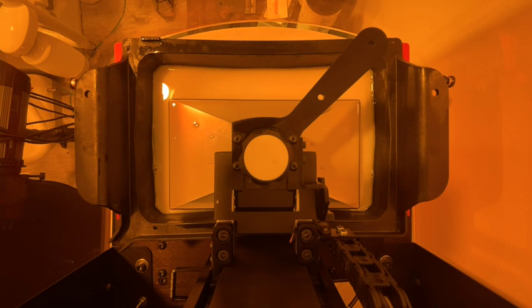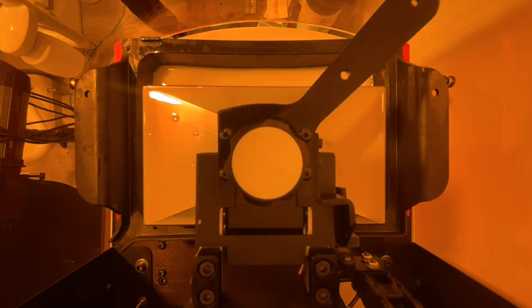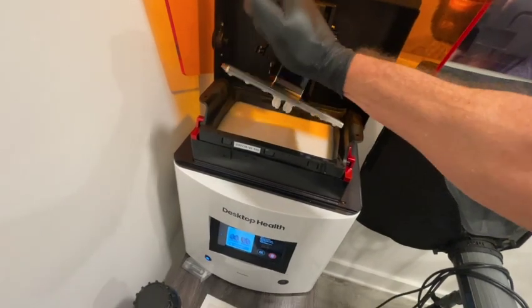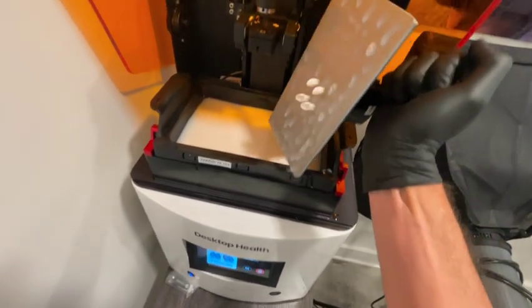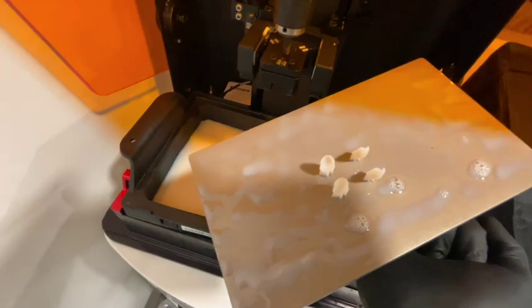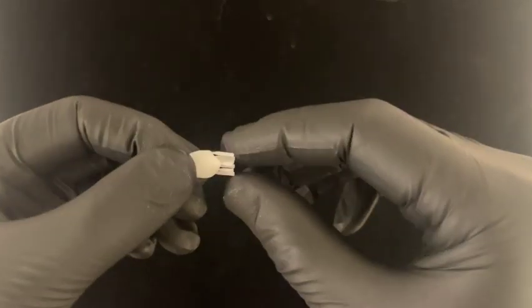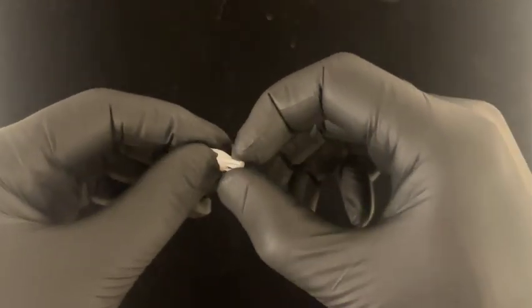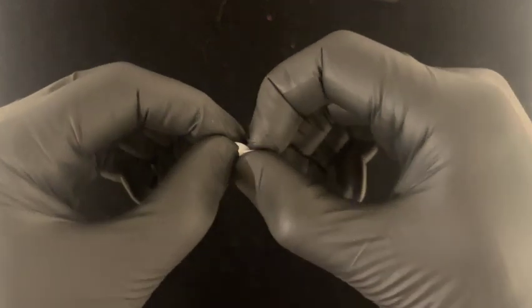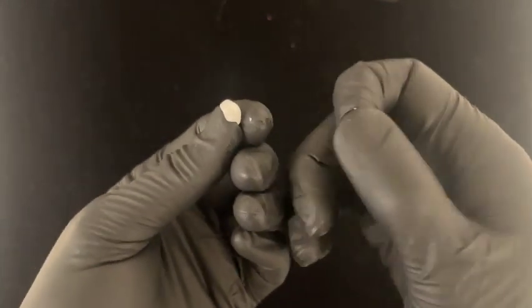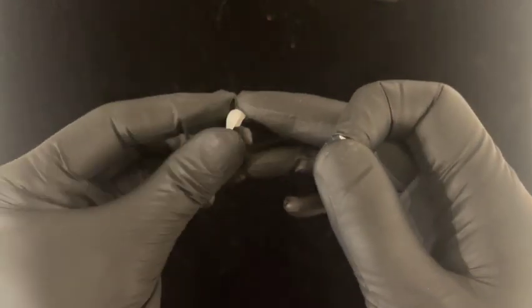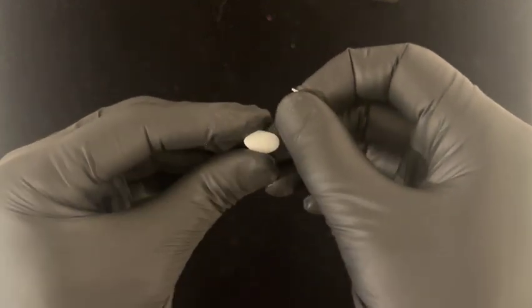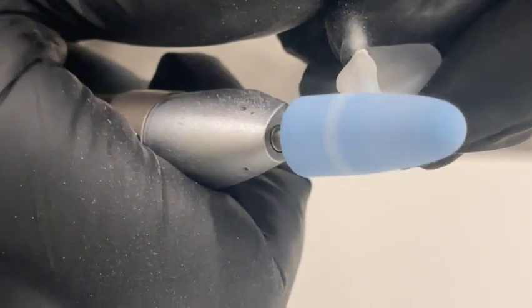So this is about an 18-minute print on the Einstein. Once it's done, we are going to put it in our alcohol bath, get everything nice and clean. And then we will just remove the supports, finger pressure. Like I said, these things peel right off, even with something very thin and fragile like a veneer. Really, really simple to do.